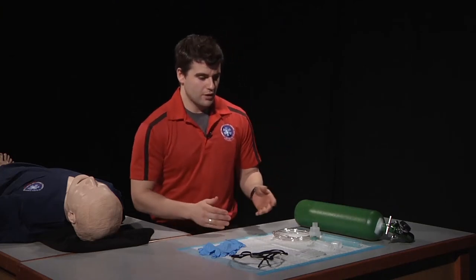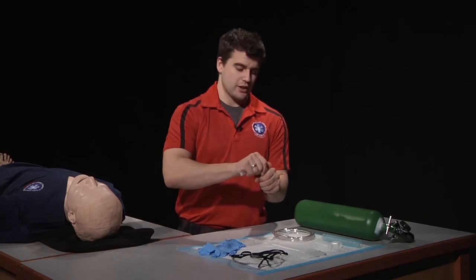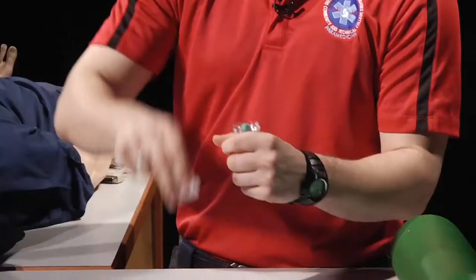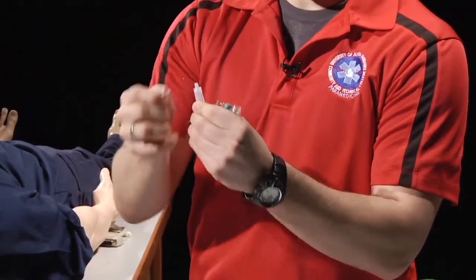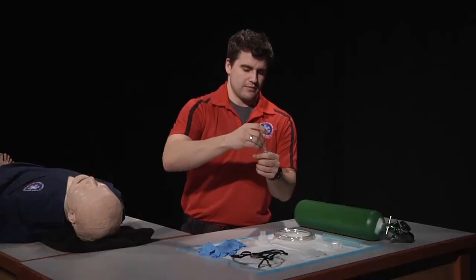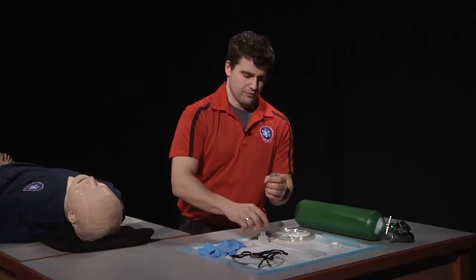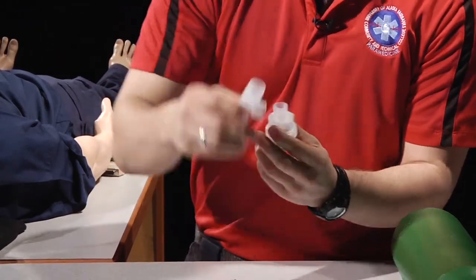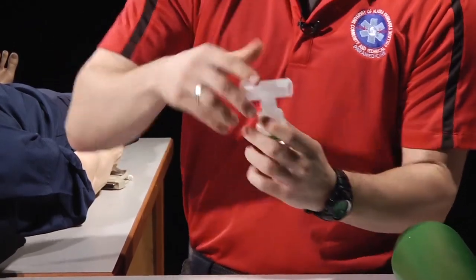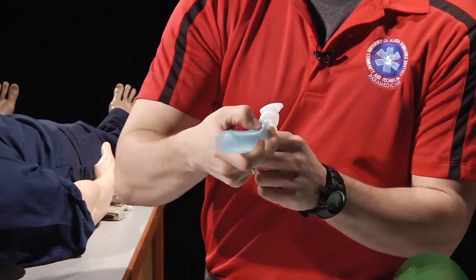Now it's time to assemble our nebulizing unit. The first step is to put the medication inside of the medication cup. We'll remove the cap and squeeze it in. From there, we'll attach the T-piece, our mouthpiece, and our extension tubing.